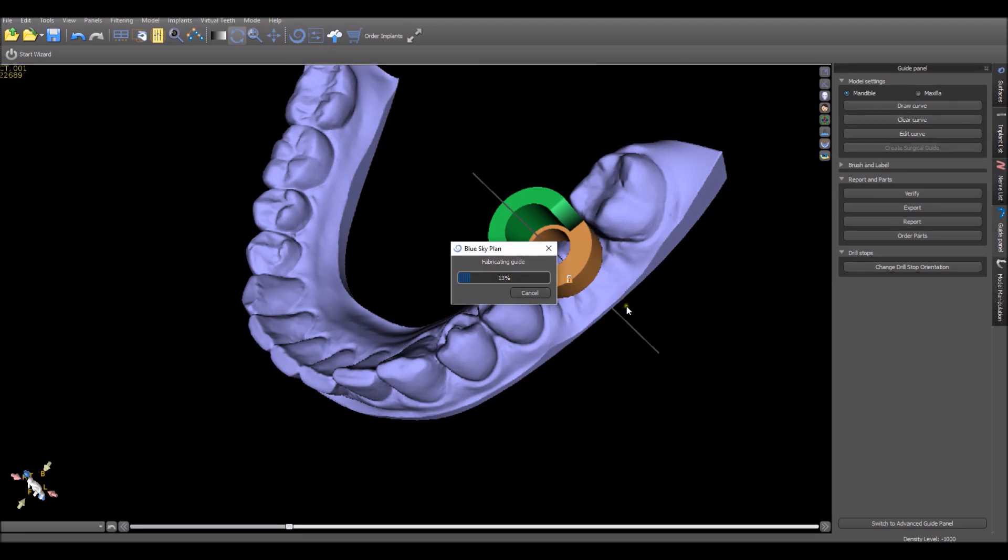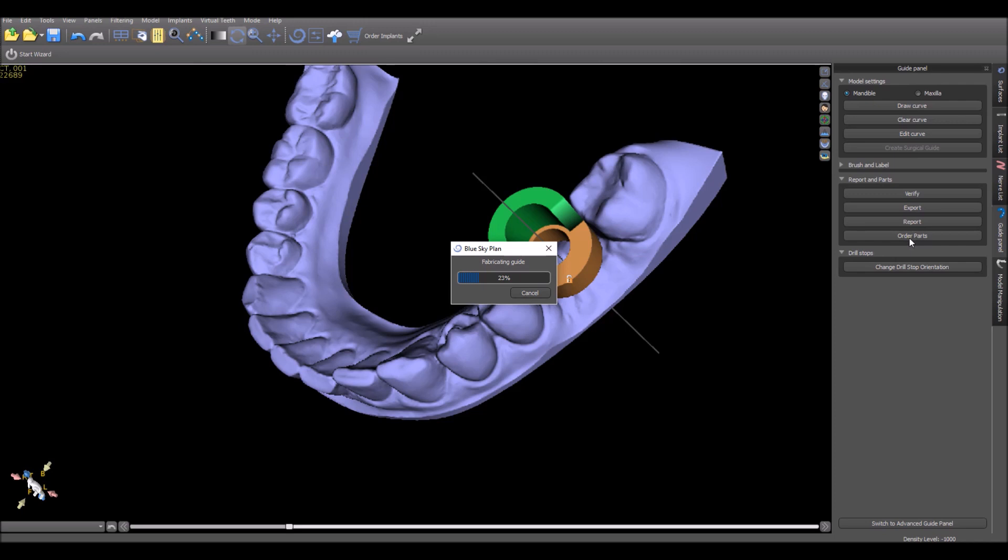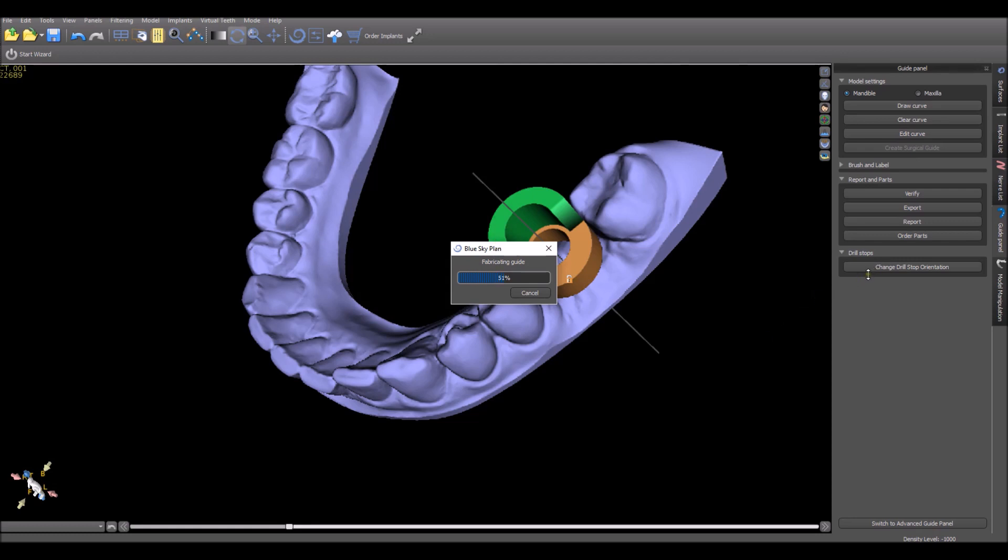We can have Don't Show This Message for the case or for two weeks. Choose what we want. Click Save New Settings. And the software goes ahead and fabricates the surgical guide. While this is processing, it takes a minute or two. We have the ability to export the surgical guide to an STL for printing. To generate the reports, we just press the Report button and it creates a PDF file. And Order Parts brings up the Blue Sky Bio website with the relevant parts—metal cylinder, implant, drill—added to the shopping cart. You could remove items from the shopping cart there also if it's not relevant and allows for very quick and easy checkout. Change Drill Orientation—Drill Stop Orientation allows us to rotate the green built-in drill stop. So that option exists as well.